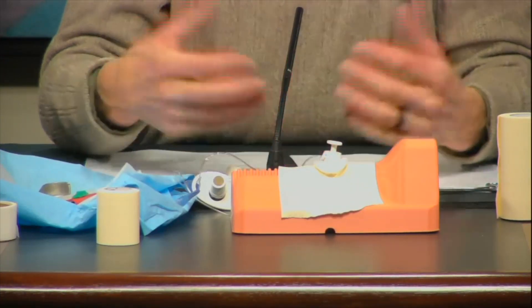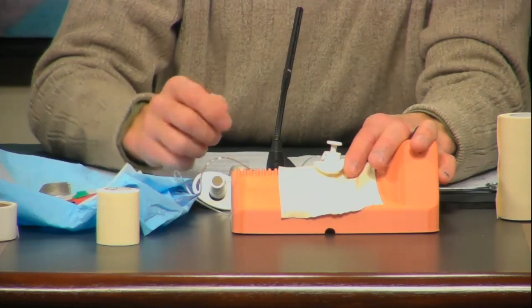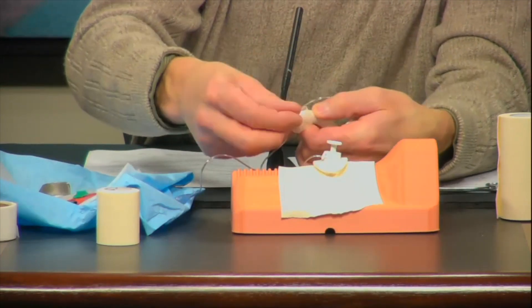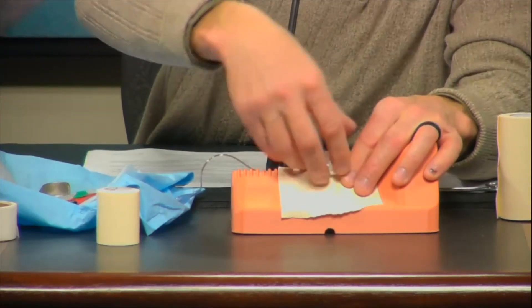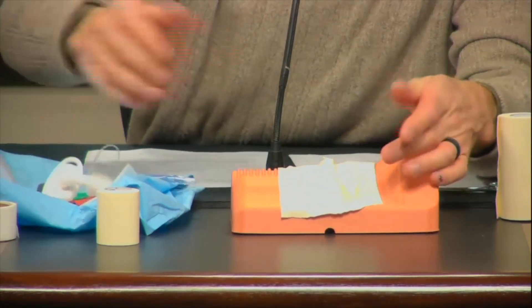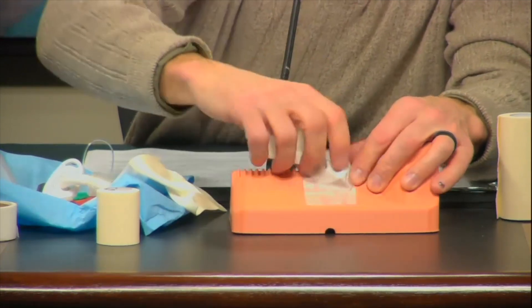The purpose of the backing tape is for when we remove the device from the trainer. Because the back side of the tape is sticky, it will catch balloons and tear them, same thing with ET tubes. With the backing tape on there, these will slide right out. Then simply remove the tape, and you're ready for your next repetition of the skill.